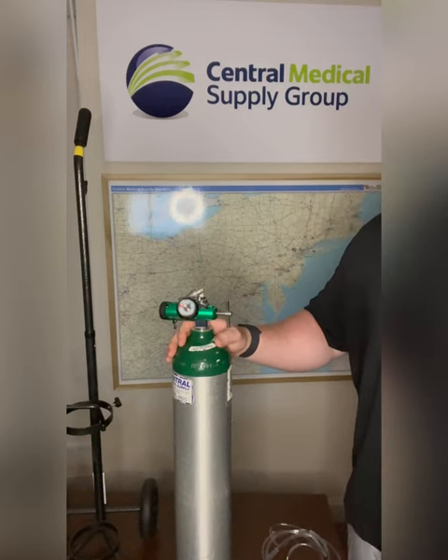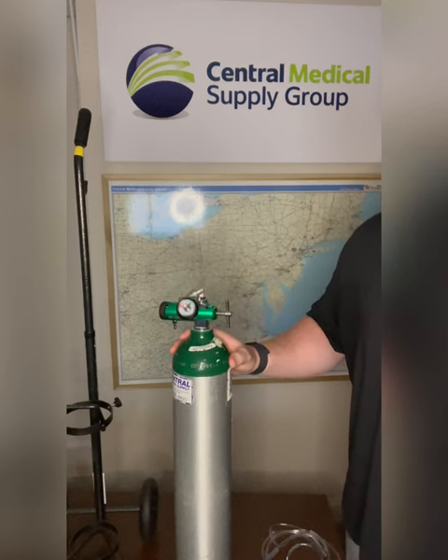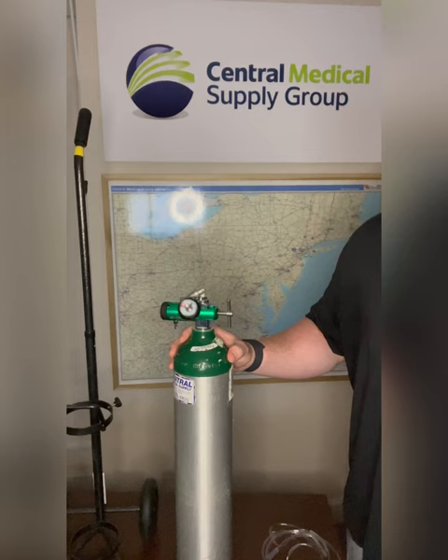When using our backup tank, please be aware that there are no active fire sources present in the room — candles, stove, or a fireplace. Oxygen is an accelerant and will cause severe damage to the patient and the home.